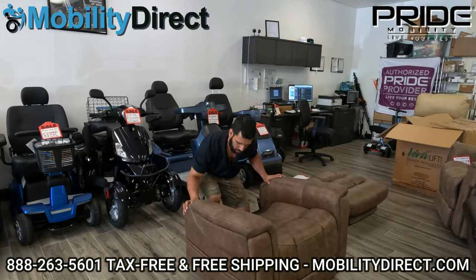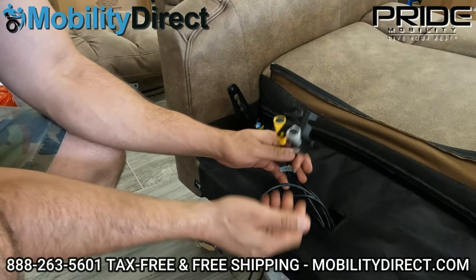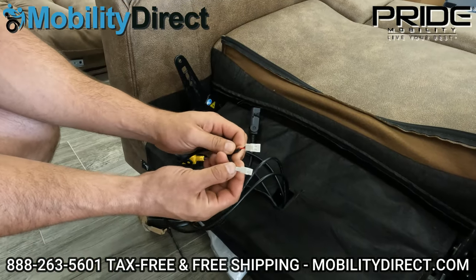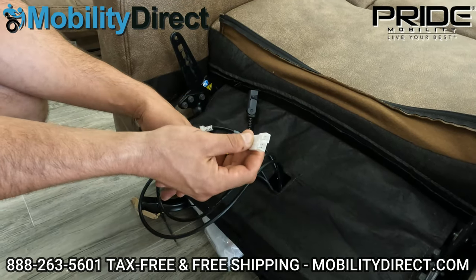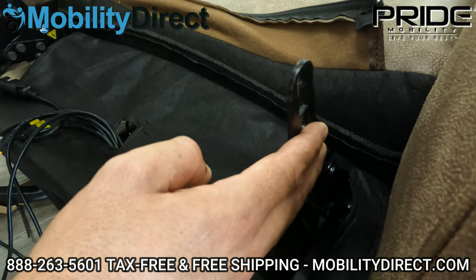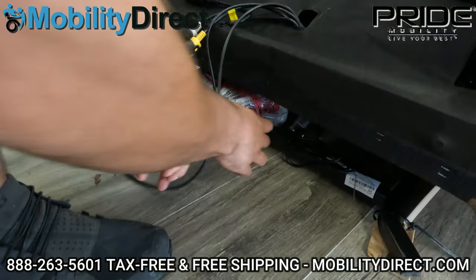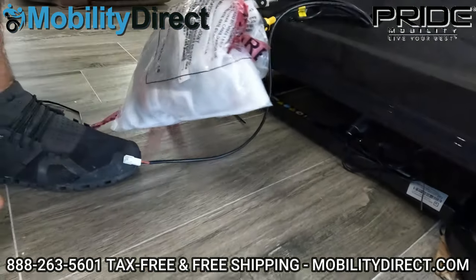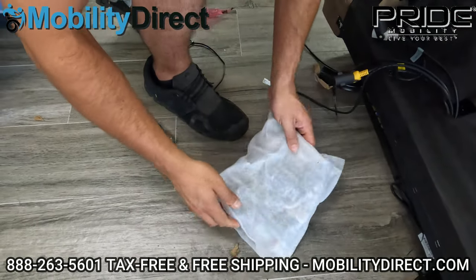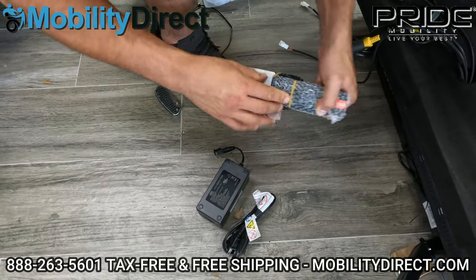We cleaned up a little bit. Back here, there are a total of one black, one yellow, and one gray barrel connectors — these are the female ends. Then you have two little JST connectors that are going to be for the heating feature. These two arms right here hook into the backrest, which has the female parts that cover over these and hook into it. On the bottom of the chair, there's a hardware bag. Once you have that out and open it up, you're going to find a couple of things.